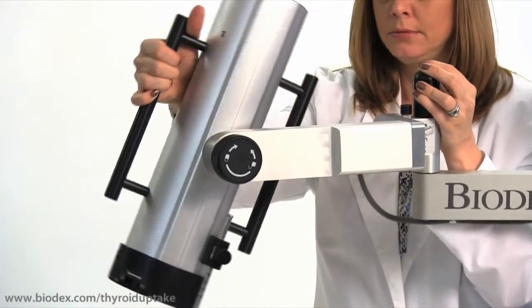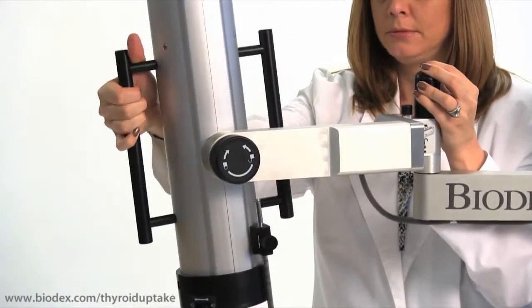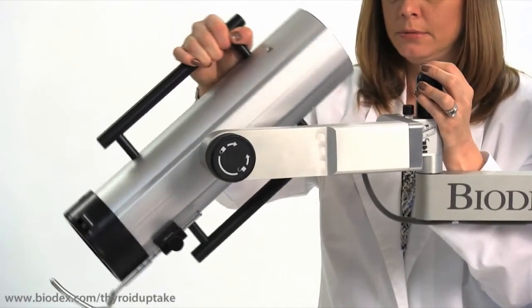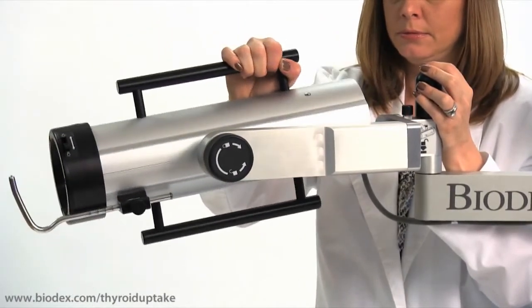The AtomLab 960 Thyroid Uptake System handles clinical tests, QA compliance tasks, and system administration procedures quickly and accurately.